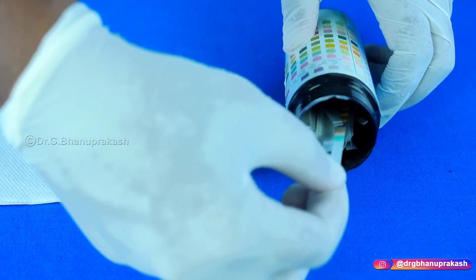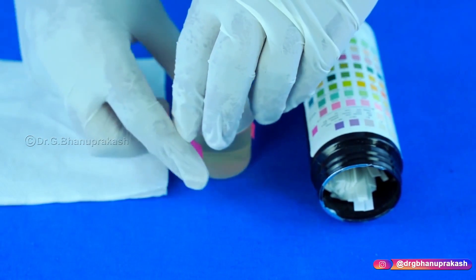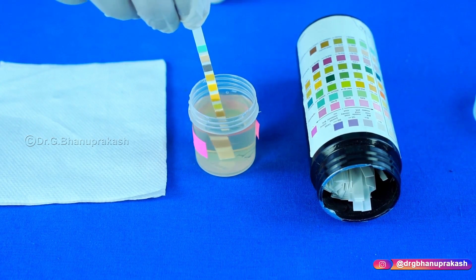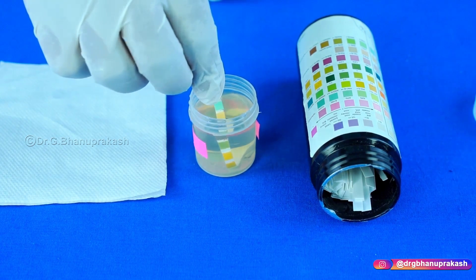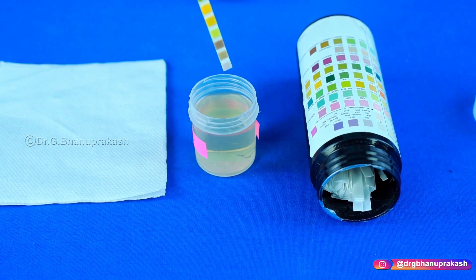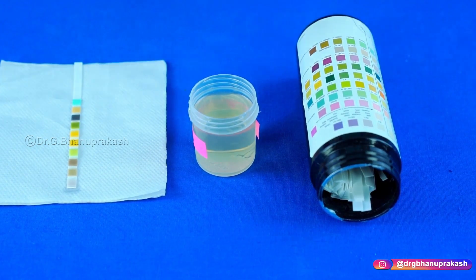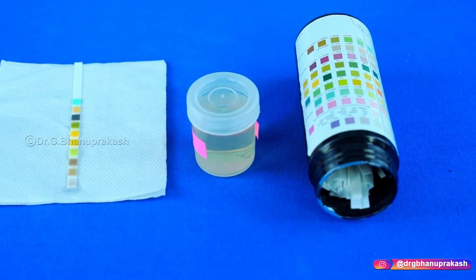Take the dipstick from the box. Now open the lid of the container holding the urine sample. Immerse the dipstick into the urine sample container, making sure that all the zones are completely immersed. Remove the dipstick and place it gently on the paper towel. Keep the lid back onto the container, wait for a minute, and then start to interpret.